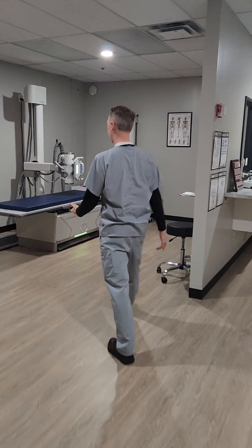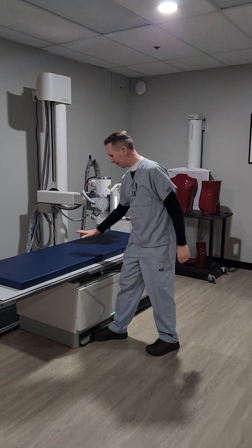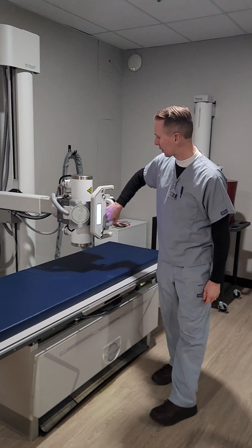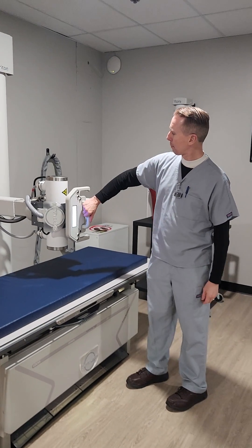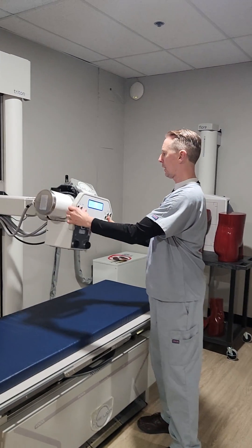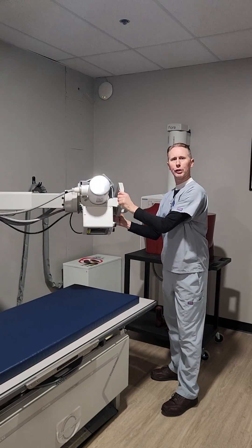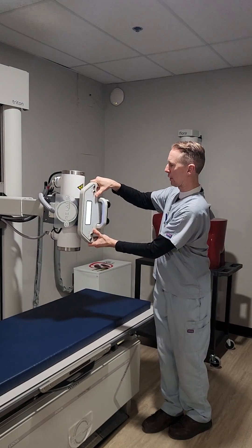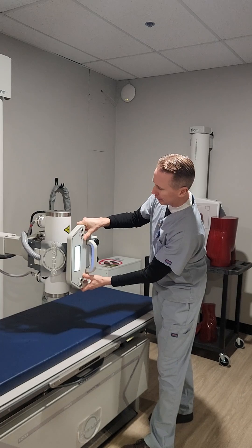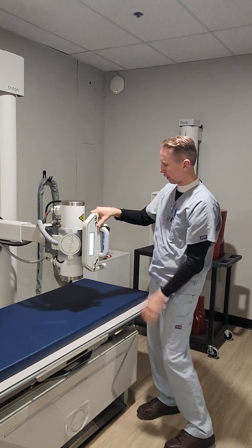We'll come over here to our x-ray table. This is our x-ray table — we position a lot of exams on here. This is our x-ray tube; it moves up and down and we can move it all around. We can do all sorts of types of positions with this. It's very freely movable and we can get very creative with x-ray.